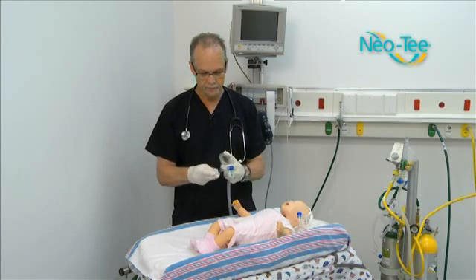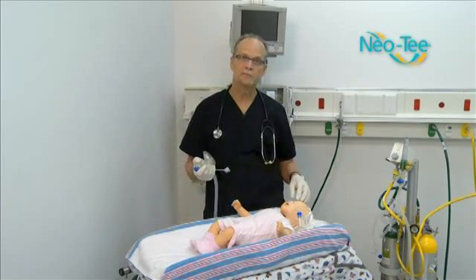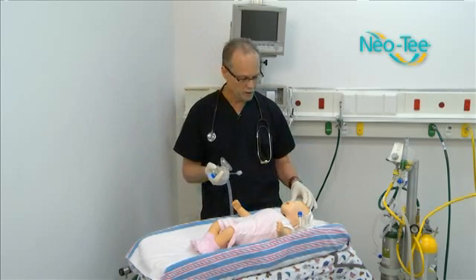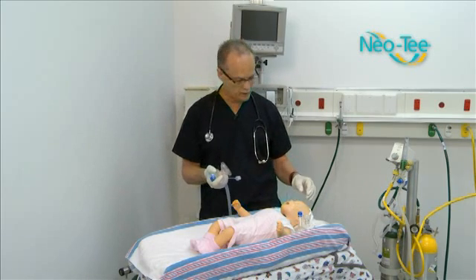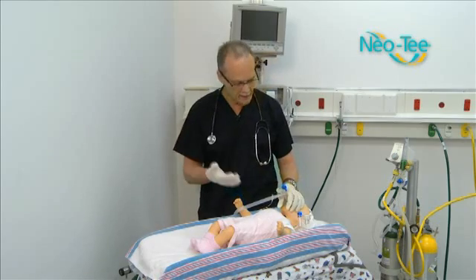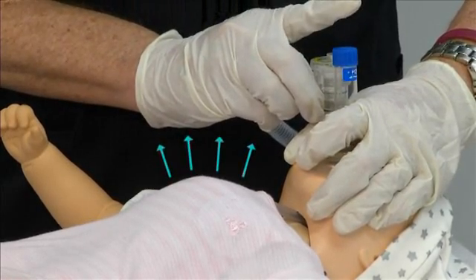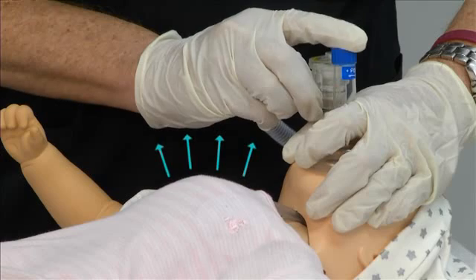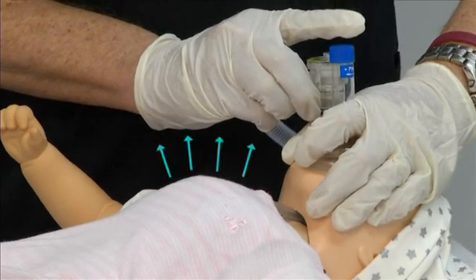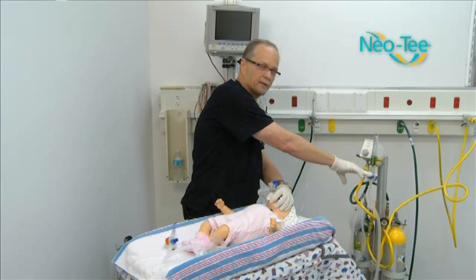Take your cap off and put your mask on. When resuscitating someone of this age group, the proper size mask will cover the nose, the mouth, and part of the chin, but not cover the eyes. Avoid the soft areas under the chin that can occlude the airway, and don't hyperextend the head too much — that can also occlude the airway. Keep your fingers in a CE-type configuration, with fingers on the jaw applying pressure to get a seal. Instead of squeezing a bag inconsistently, all you do is put your finger over the hole, then watch for chest rise. You can monitor your pressure and adjust your PIP to get the chest rise you want — it's a much safer device.